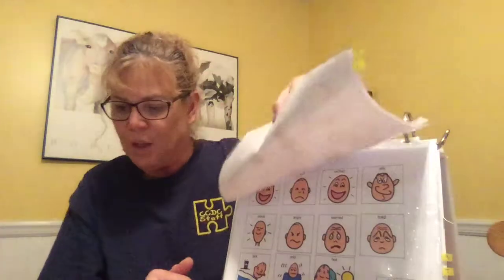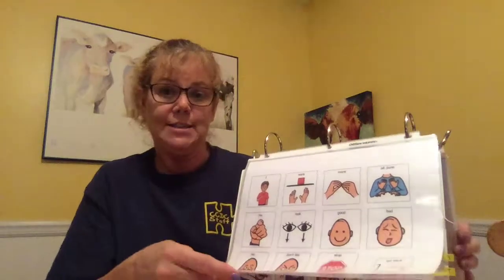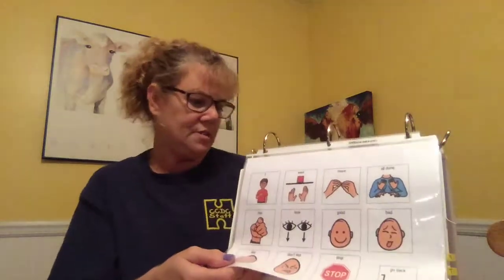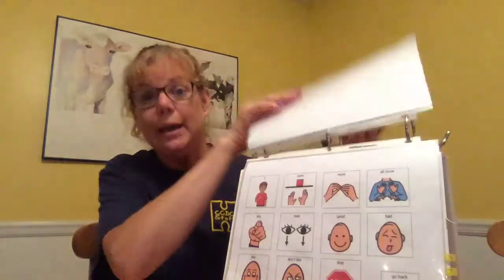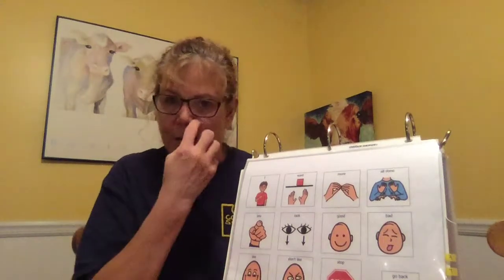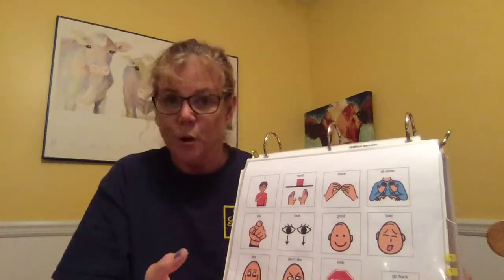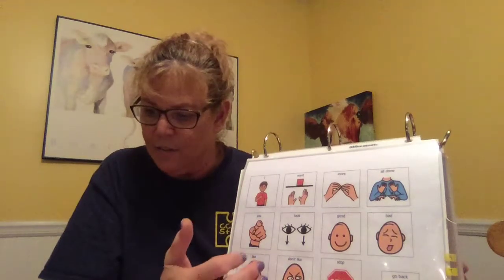So I chose this type of communication system because it can be customized specifically for John and changed and added to as needed. The first tab, and just give a quick look, would be the quick word. So this would be John's basic core vocabulary to start with. And if he picks this up very quickly, smaller icons, more icons per page, more words, and those kinds of things.